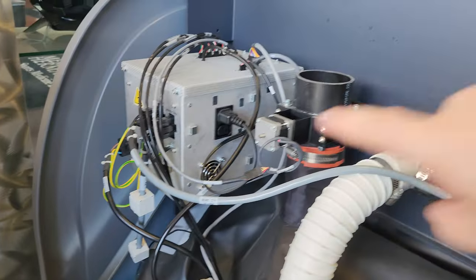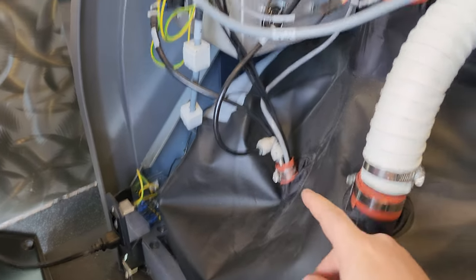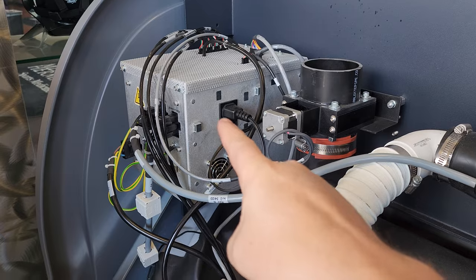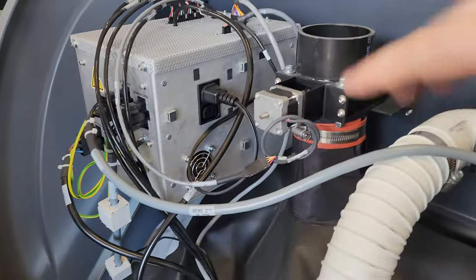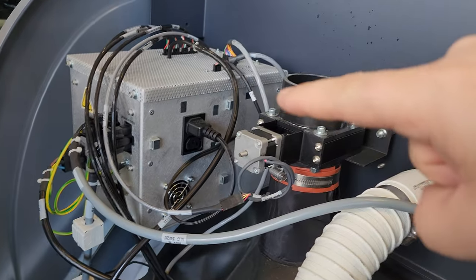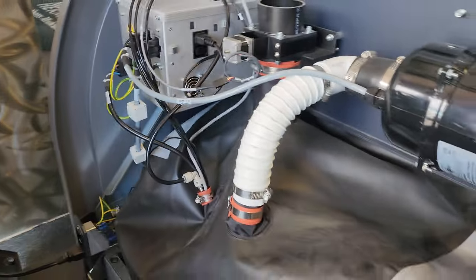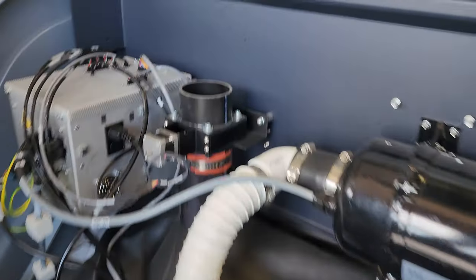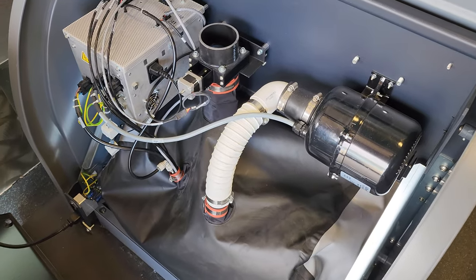The blower is turned on by that box over there. The treadmill itself is actually powered by the box over here — you can see the wire right there. So the treadmill is powered, communications and everything — they all go through that box over there. Really unique system. I doubt you guys will ever really see one again, but if you do, it's really not that difficult to figure out what's going on.